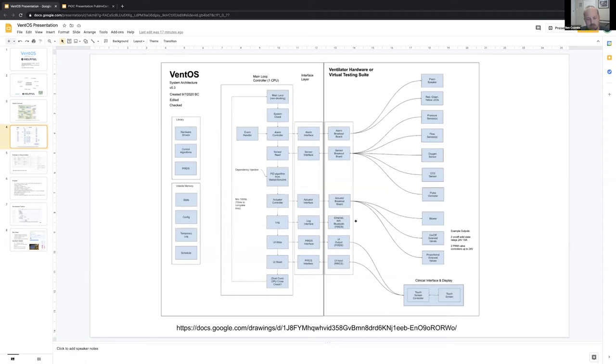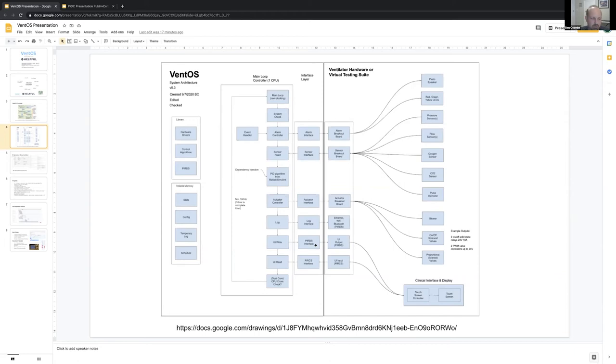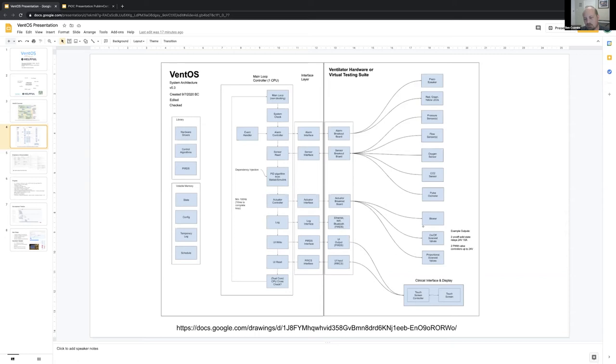It's just a simple loop at the moment, which is one RTOS task, and then we can have that with other RTOS tasks as well, which could be restarted if it needs to. You can see here the modularity in play as we have different interfaces that we've started to define in C++ using Platform IO. The idea is that you can inherit from these different classes and then implement your own drivers, so specifically for your hardware or your valves or your blower motor, so that the core loop still functions even though your hardware might change. It's building off that resiliency in the supply chain.